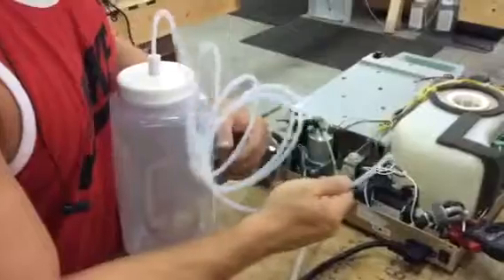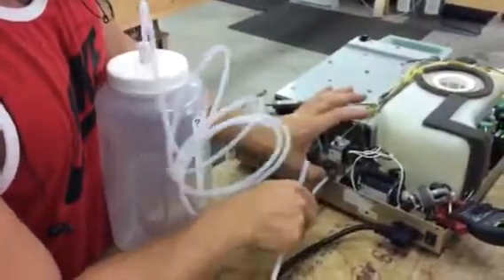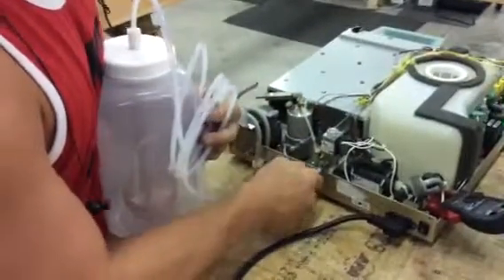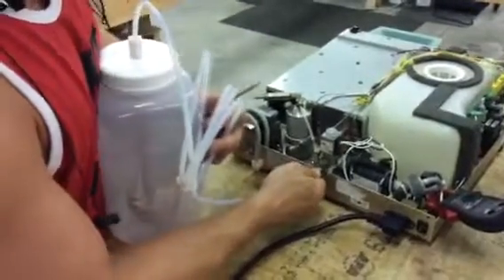To hook the bottle kit up, you push in on this ring, push in, pull out. That will pull that tube out, and then push this end in. Make sure it's round. Push it in until it meets resistance, and then push farther, and then tug on it to make sure it doesn't come out.